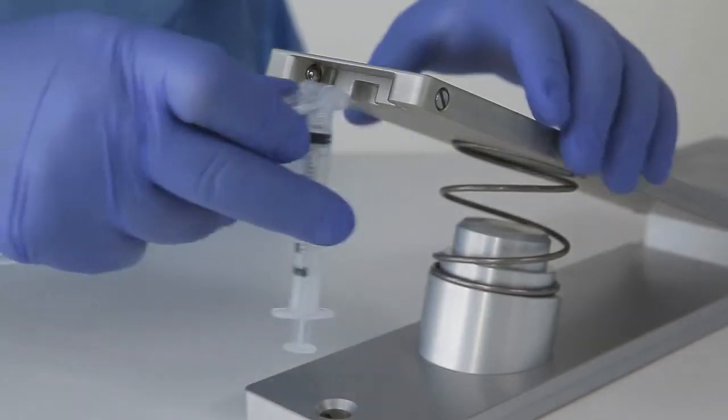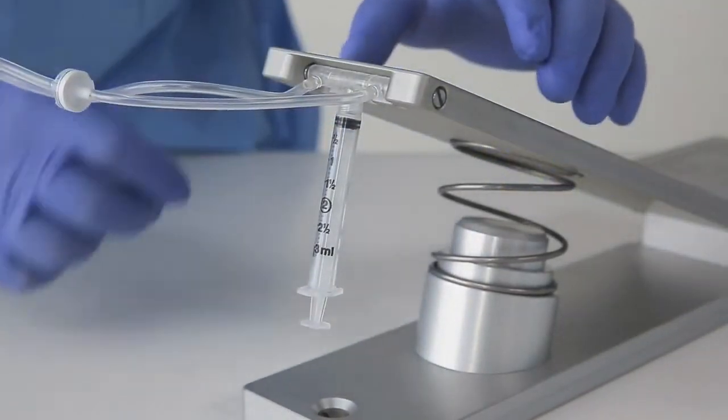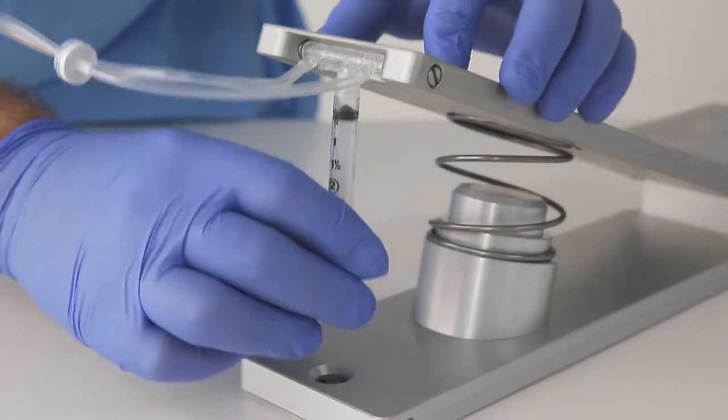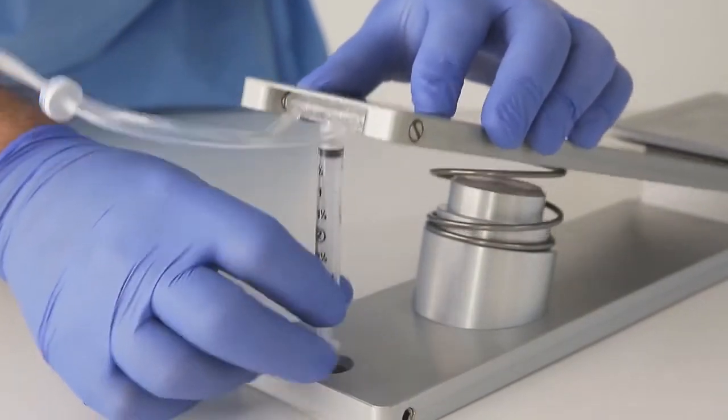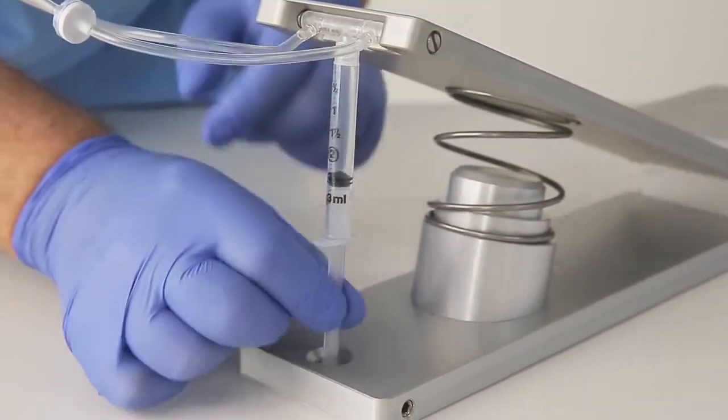Troubleshooting. Inserting the manifold into the recess in the upper plate first and then trying to load the syringe plunger into the bottom plate recess will make loading very difficult.